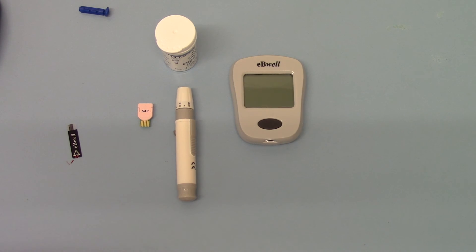That's particularly an issue if you're having to do multiple tests per day but I hope that demonstrates just how nice and easy and simple this designer meter is to use for diabetics requiring regular blood testing.